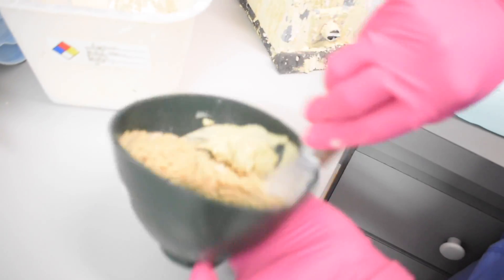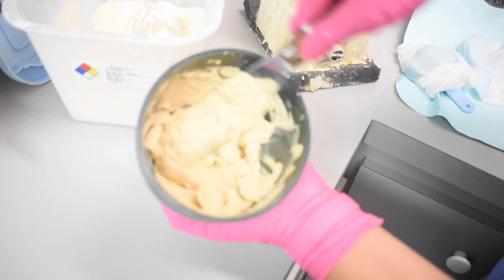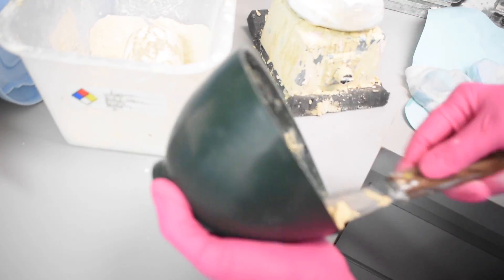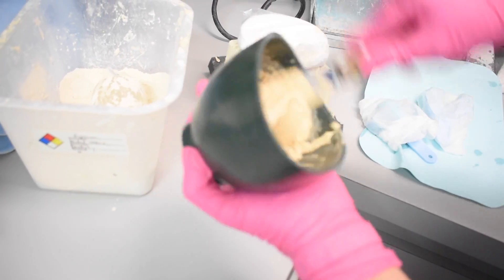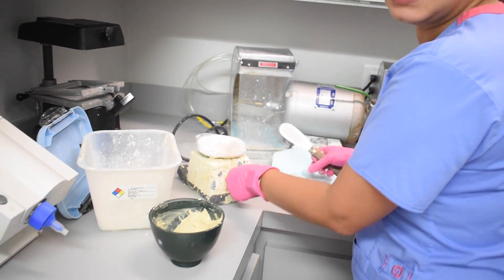By the way, we're doing these trays with yellow stone. I know people like to do bleaching trays with white stone — we just selected this one. I feel like it could be a little bit more, but I'm going to be fine with this and then I'll do the base a little bit thicker.